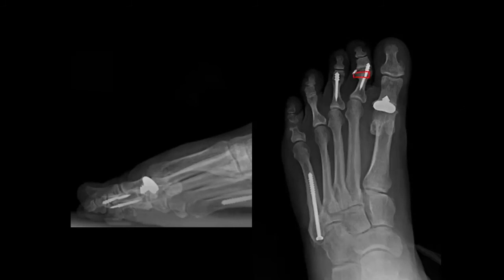This is a hemi-implant where the proximal phalanx is broached instead of screwed into the bone. On the AP view, we want the stem going down the middle of the proximal phalanx — that looks good. But on the lateral view, the proximal phalanx is in a greater plantar position — it's pointing plantar and is about to break through the plantar cortex. The plantar cortex is right here and it's about to break through. So either this was placed in a terrible position, or it's moved over time.